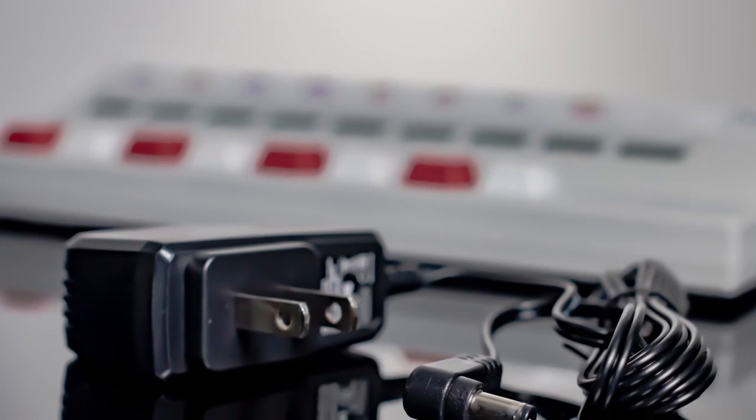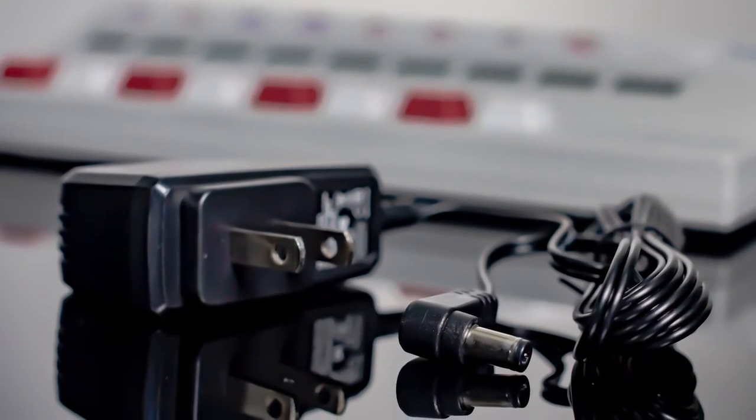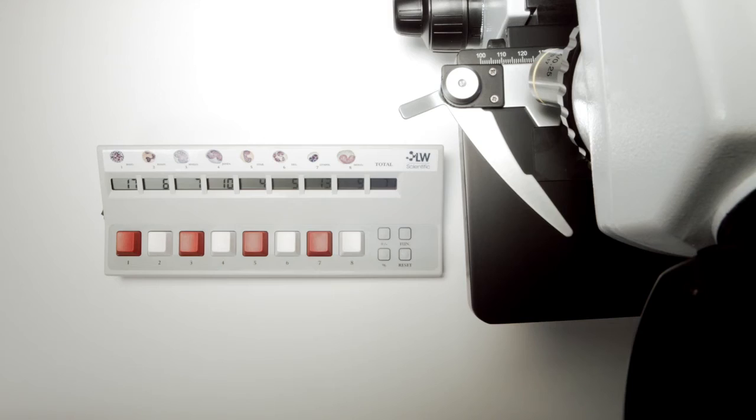Although coming with a power cable, two AA batteries can efficiently power this device, which eliminates unnecessary cable clutter.